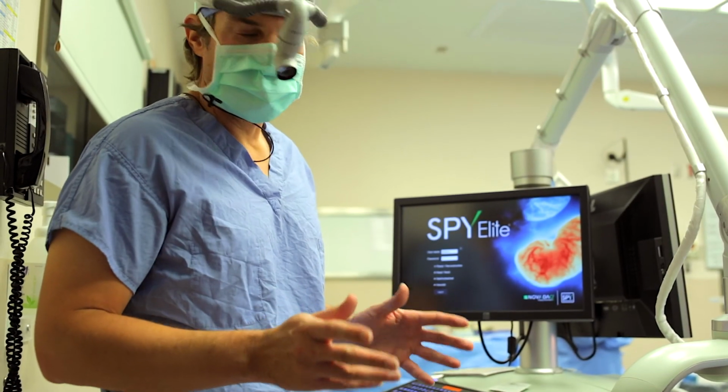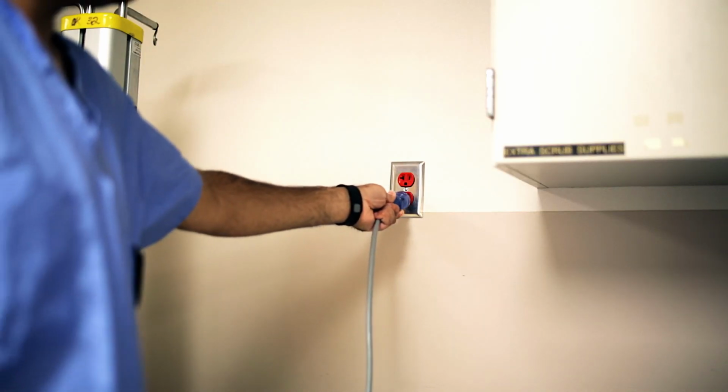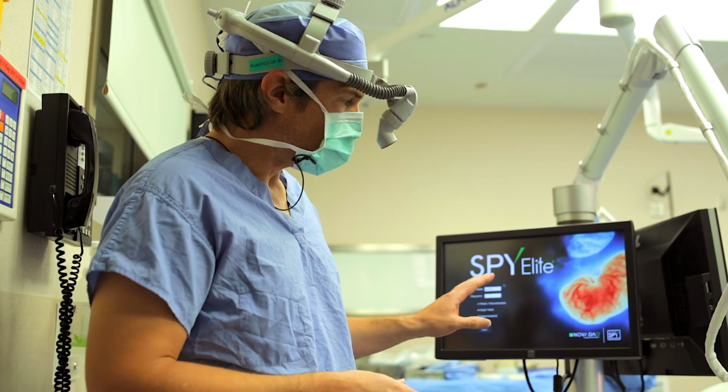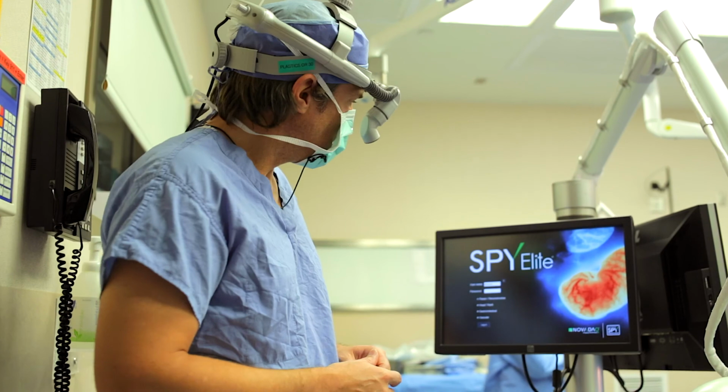So now we're in the operating room. We've brought the SPY into the operating room. The machine's been plugged into the wall and turned on. And once it boots itself up, this is the screen that you're going to see.